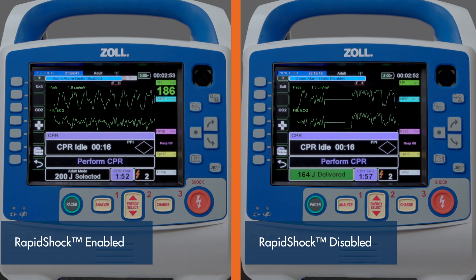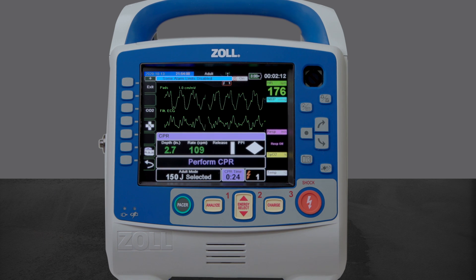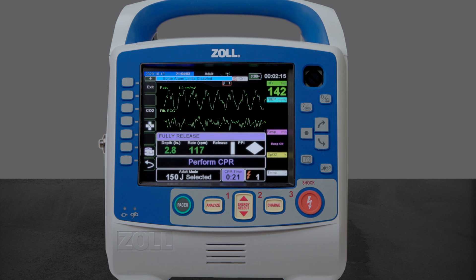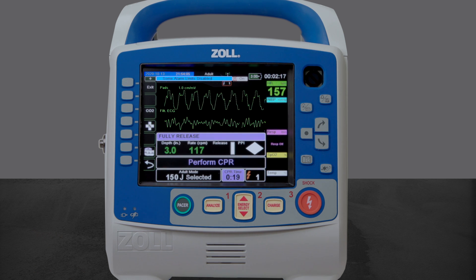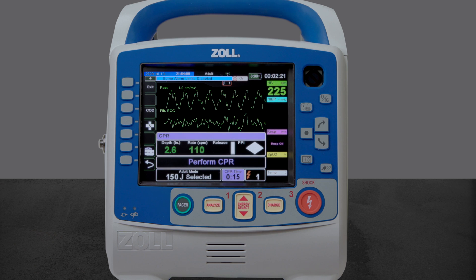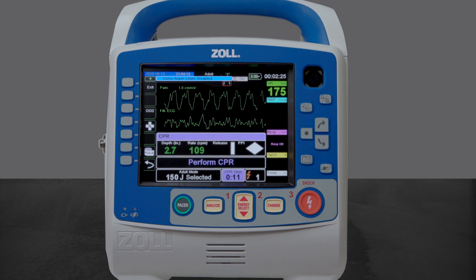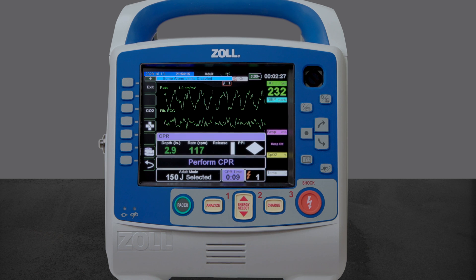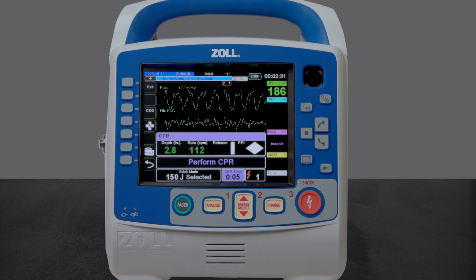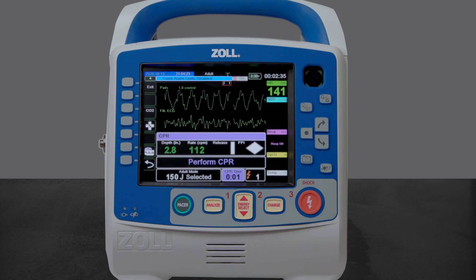The quicker analysis result allows for a treatment decision to be achieved in less time, therefore shortening overall pause periods in CPR. If operating in manual mode, rapid shock will not be utilized during the first analysis event which follows a manual press of the Analyze button. However, subsequent analysis events will utilize the rapid shock feature as long as the operation of rescue protocol remains uninterrupted.